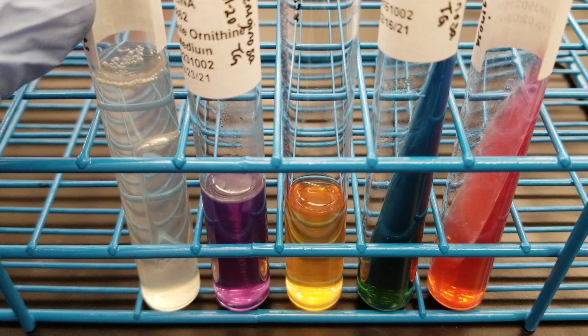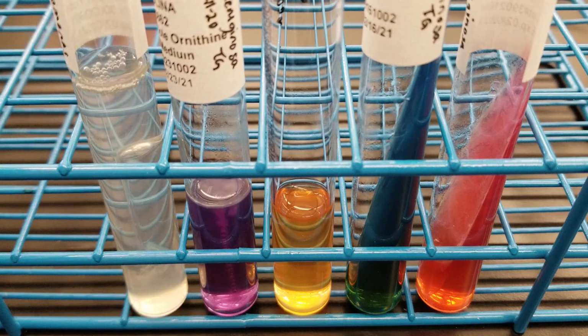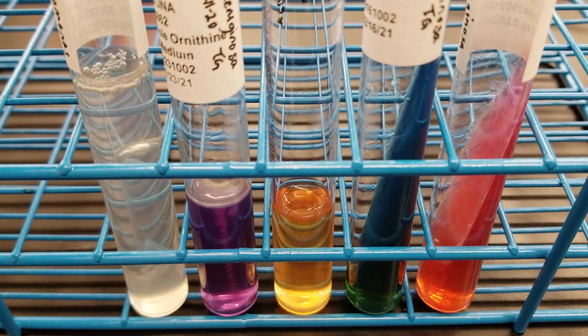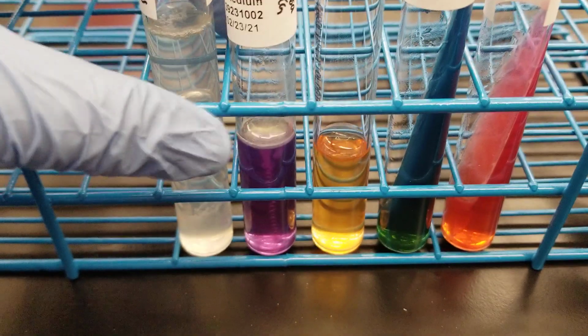Obviously, if there are bubbles, we're thinking that the nitrate has been changed to nitrogen gas, okay? So we'll see how that reacts. Do you think it's going to be immediately positive, or do you think that it's going to be negative and then positive after zinc? That's a good question. So I'll let you simmer on that for just a minute. We'll do the indole. Okay. So we have 1, 2, 3, 4. So again, indole is supposed to be negative.